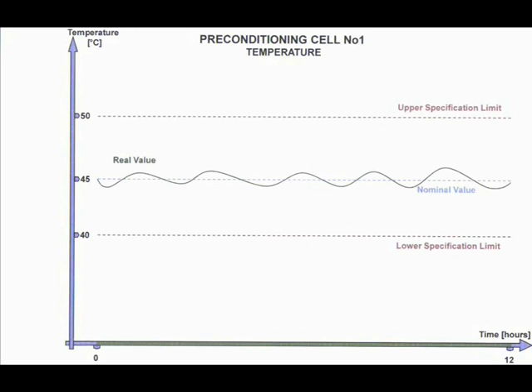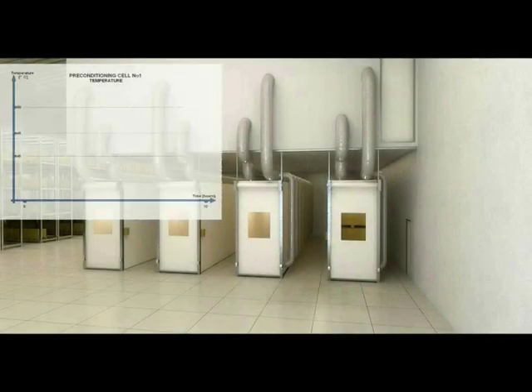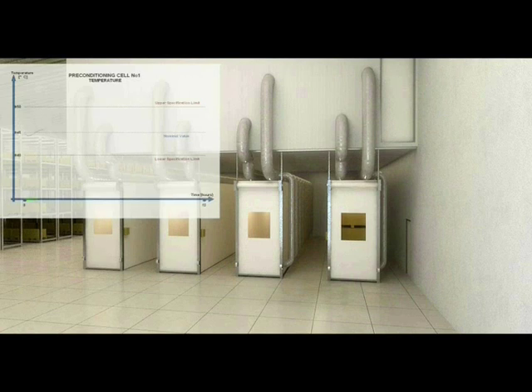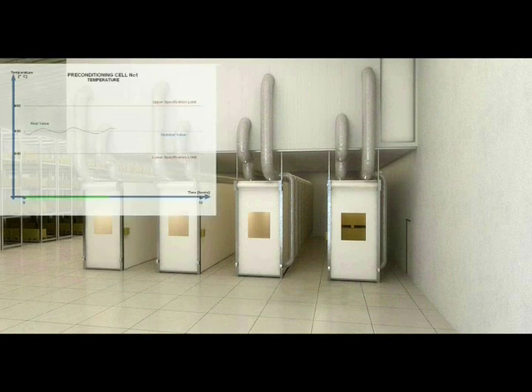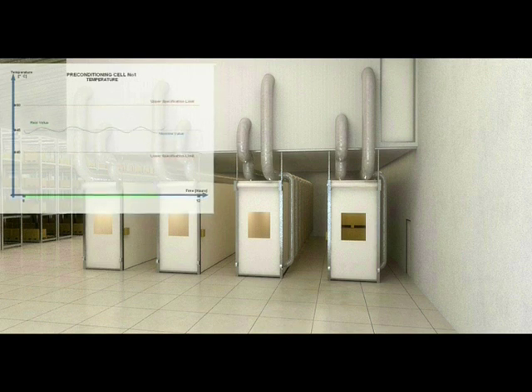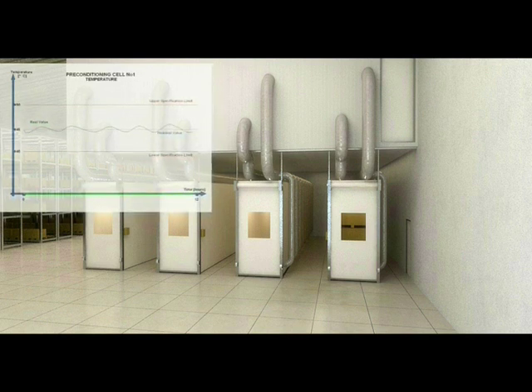Preconditioning cell number 1. Temperature and humidity stability is required in the product to ensure sterility. Product is loaded manually into preconditioning cell number 1, the door closed, and temperature-controlled air atmosphere circulated around the product for 12 hours, raising the product temperature.